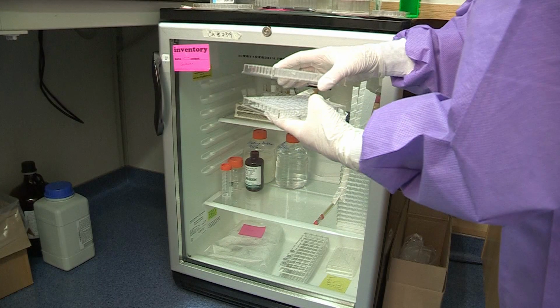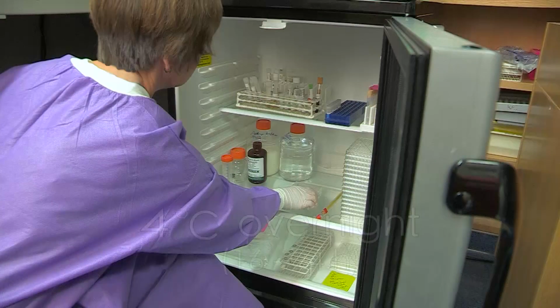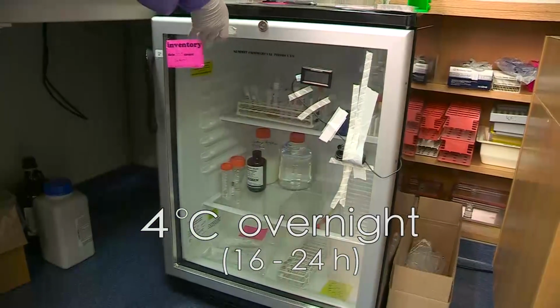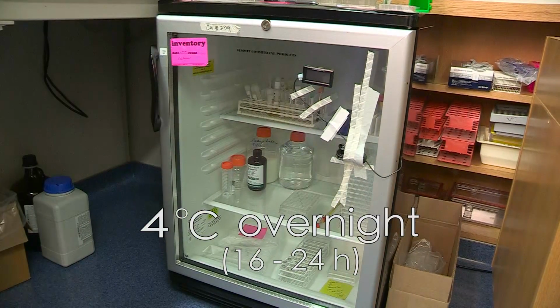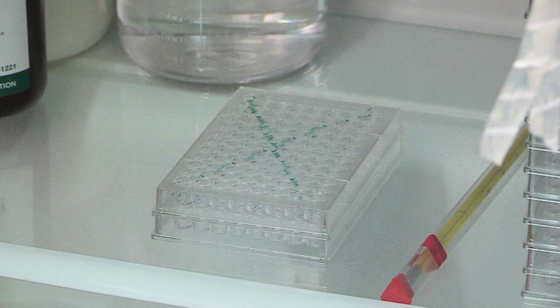Cover the plates using an empty plate or plate cover and place in the refrigerator at 4 degrees C for a minimum of overnight and for a maximum of 7 days. If multiple plates are being processed at once, it is okay to stack the plates.